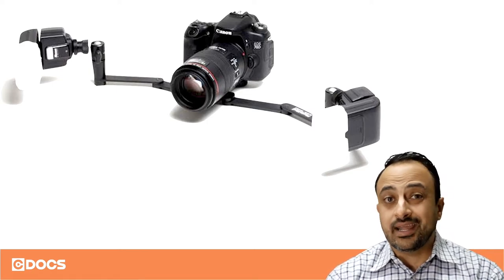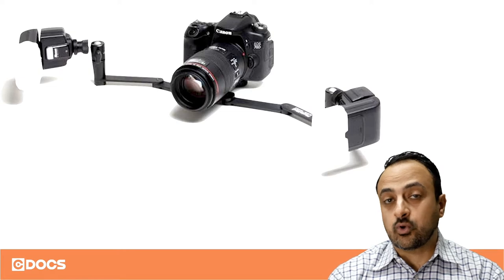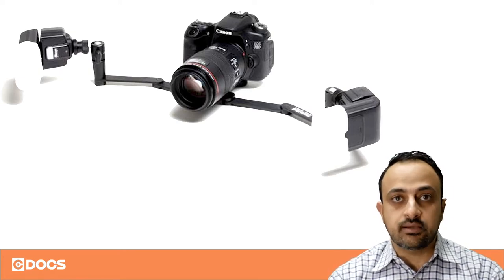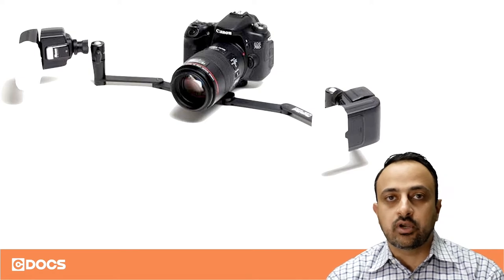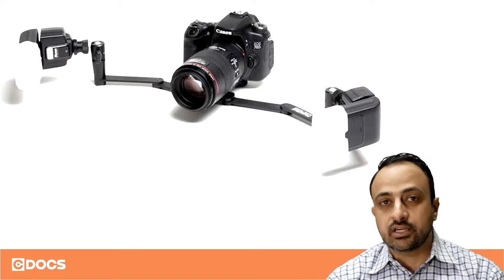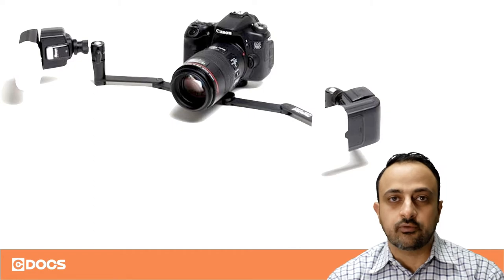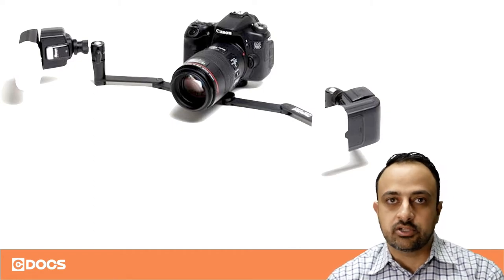One of the downsides with this type of setup is that it's quite large and has a little bit of weight to it, so it can be a little daunting for team members to try to utilize. In my practice, this camera setup is typically the one that I use personally when I'm capturing images on my patients.